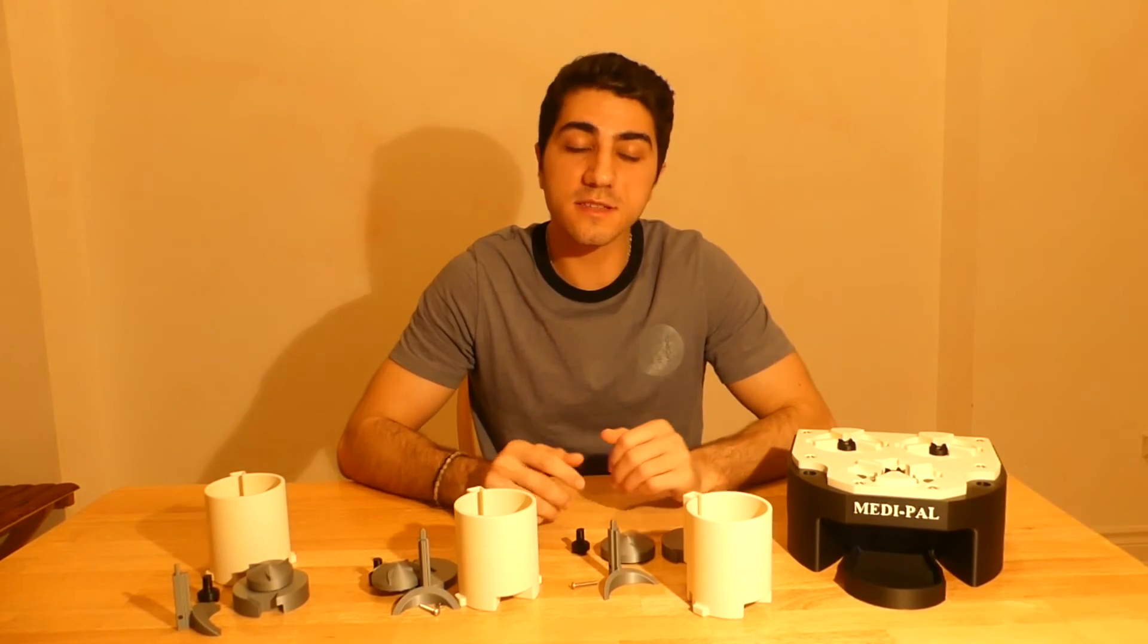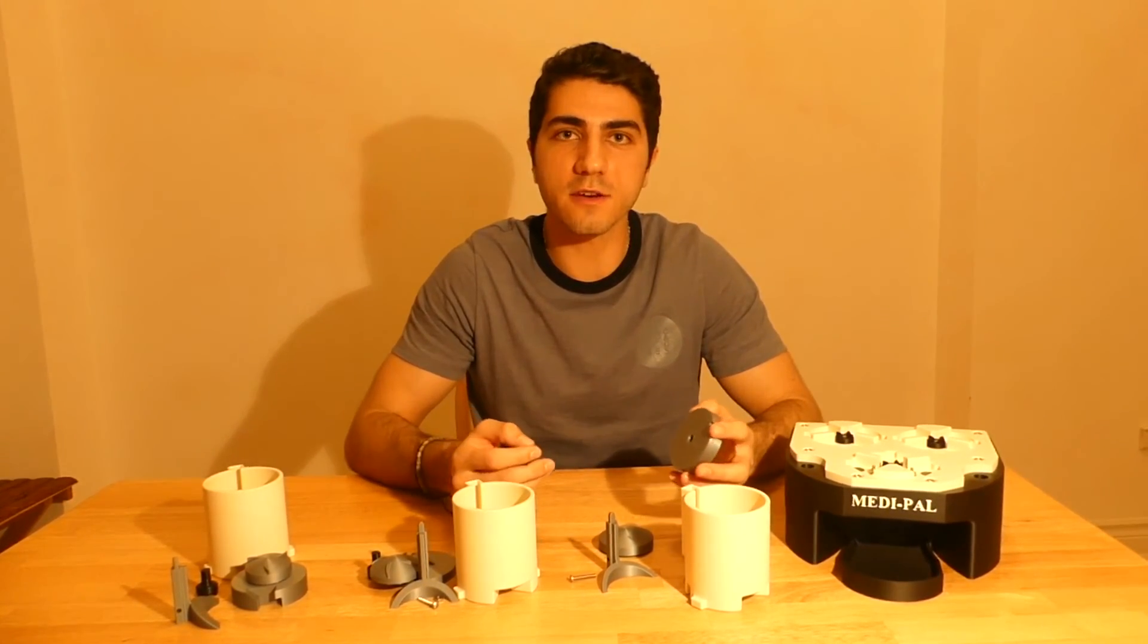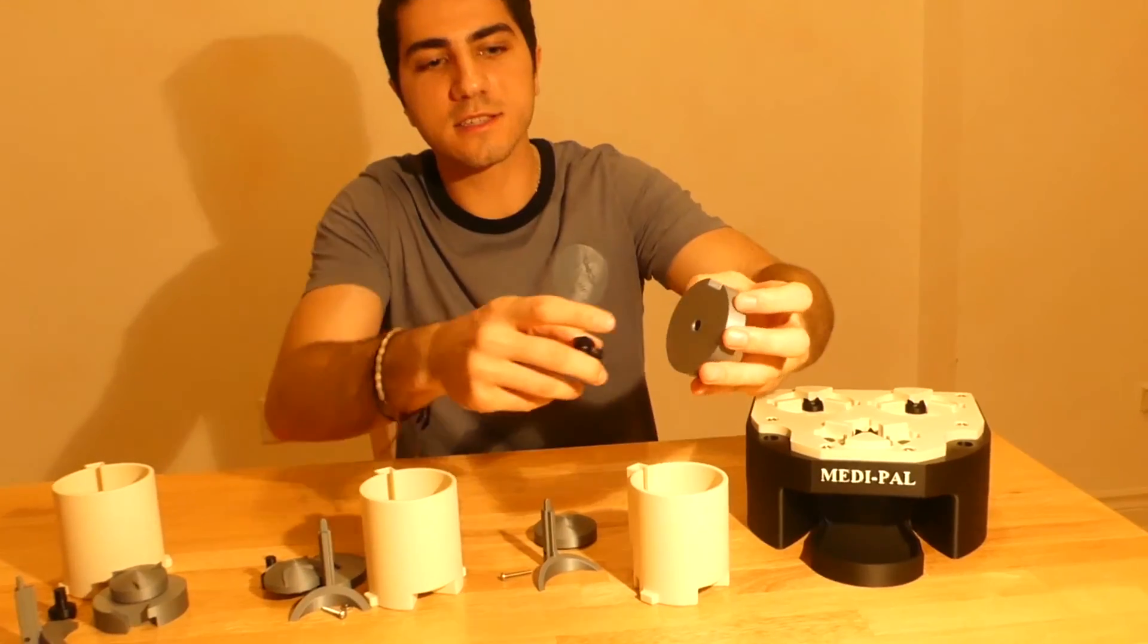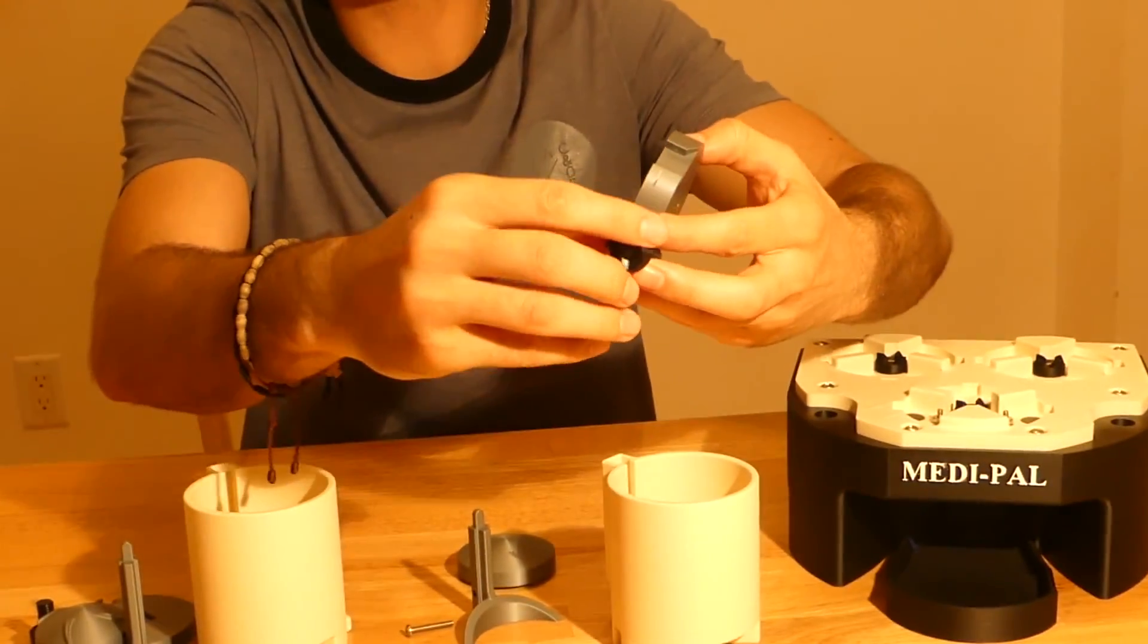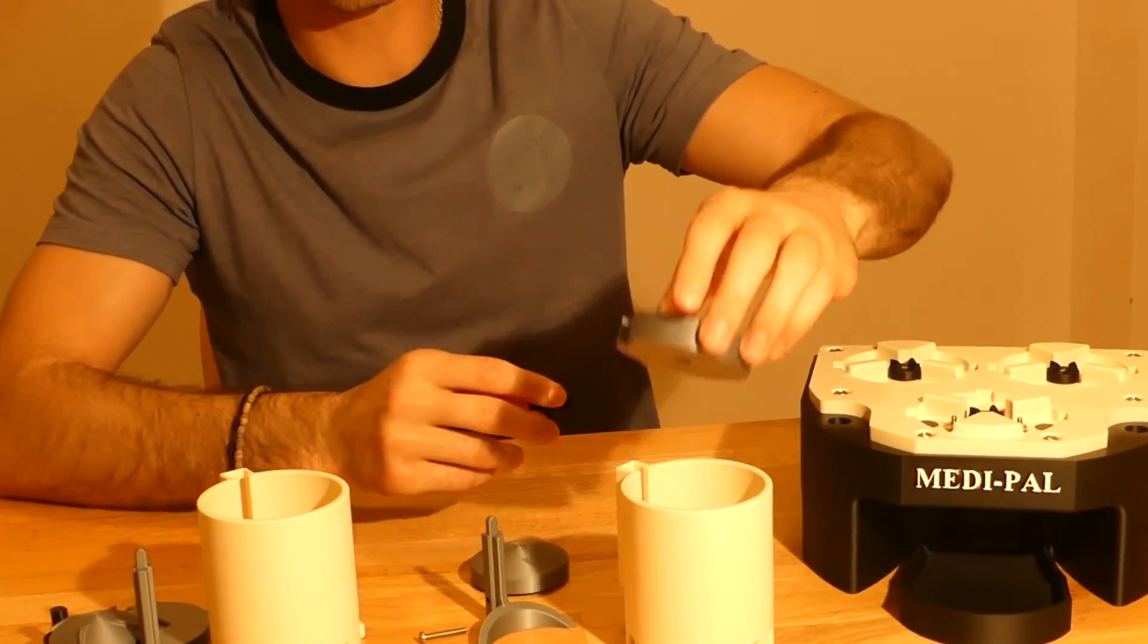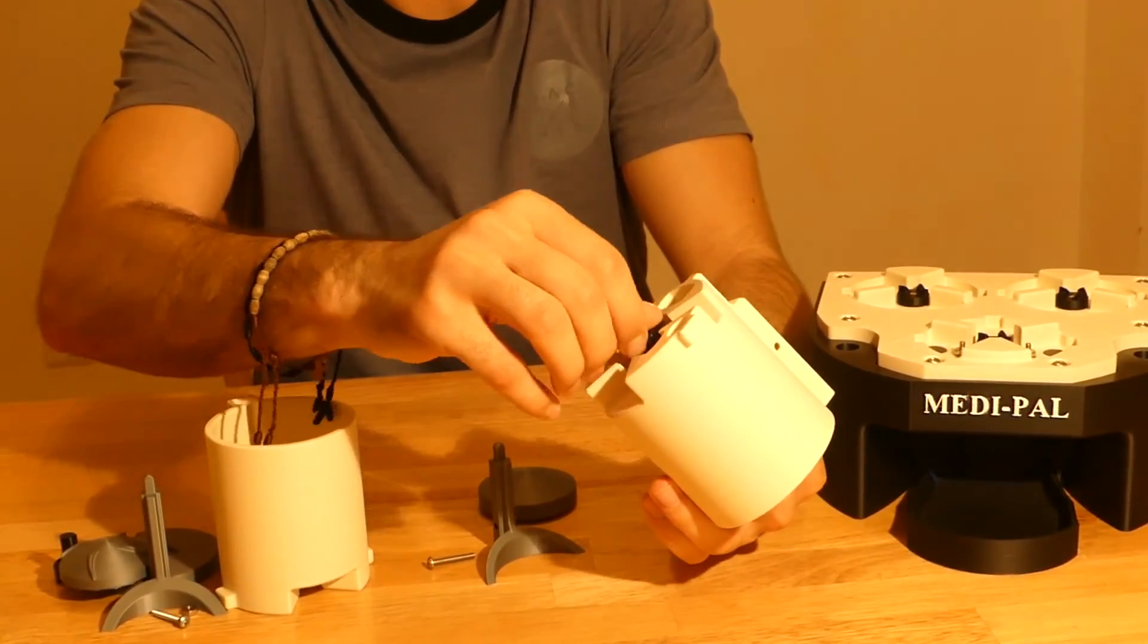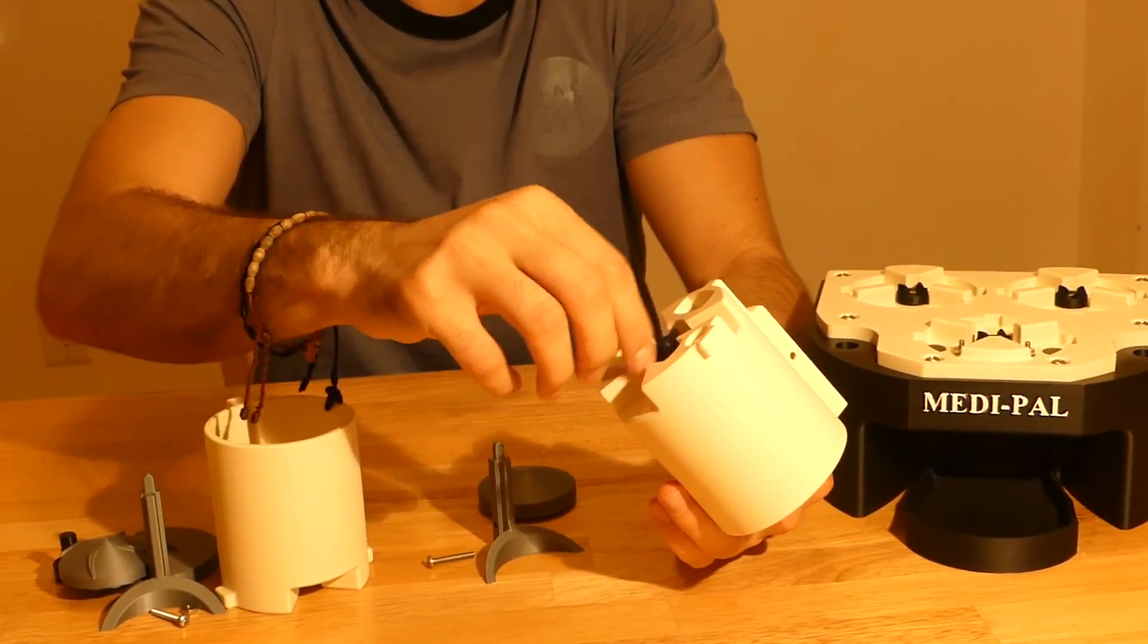The inner pieces of the cylinder can be easily swapped out by the user. The rotating disc has a threaded hole and the cylinder gear has a threaded rod. The rotating disc is placed into the cylinder and the cylinder gear is secured.